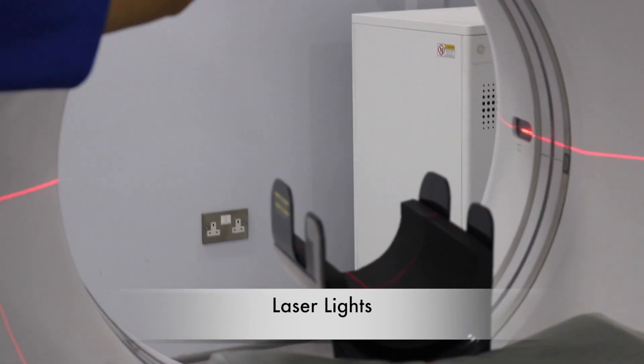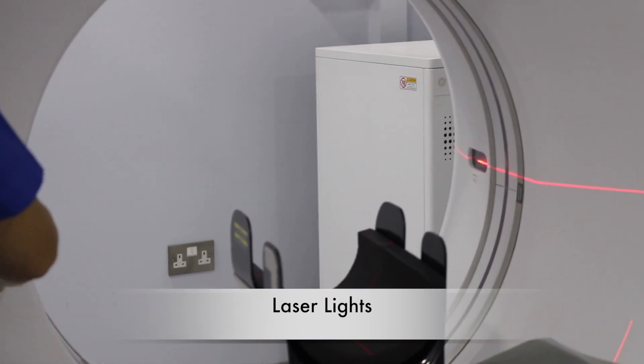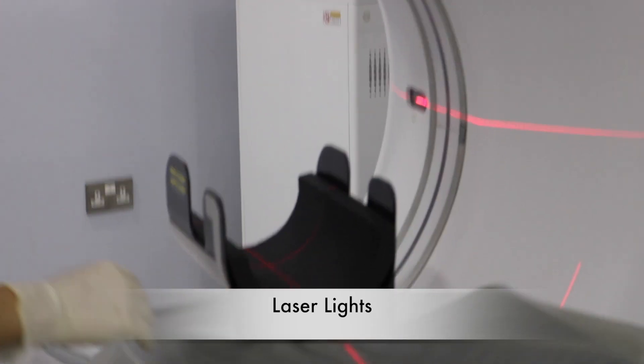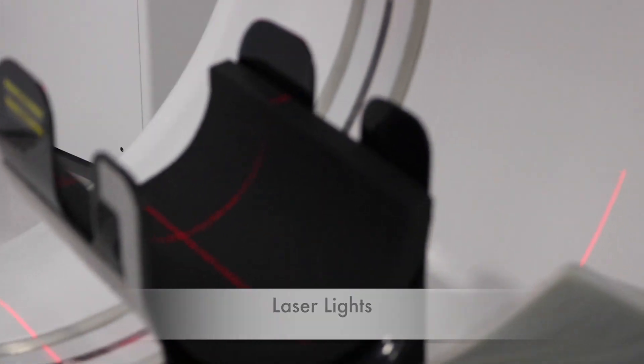We have the y-axis, the x-axis, and the z-axis. As we can see, the laser beams meet in the ISO center, as shown here.